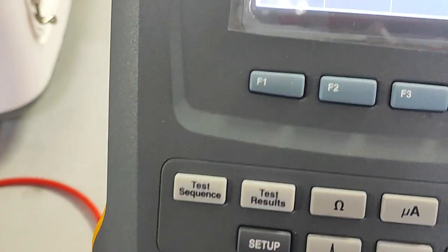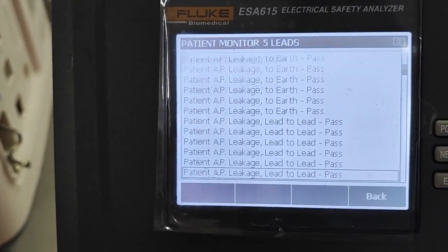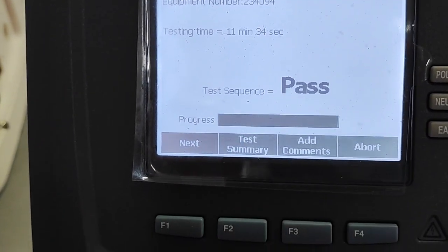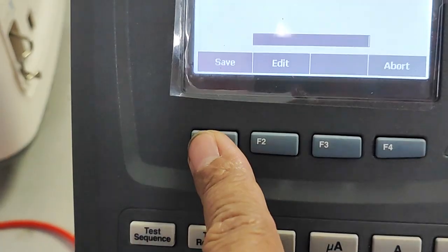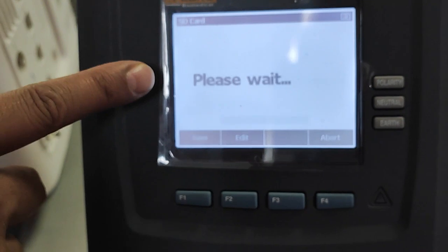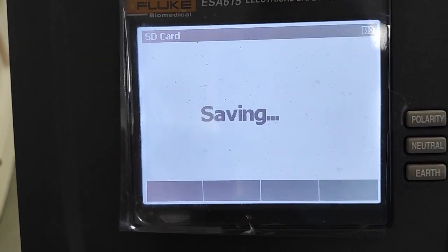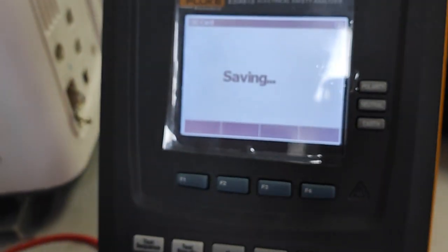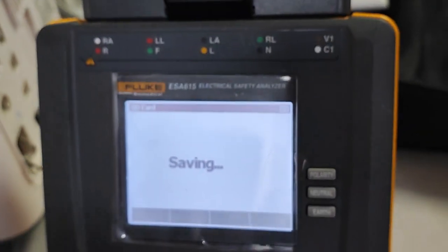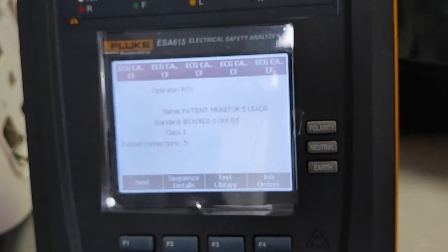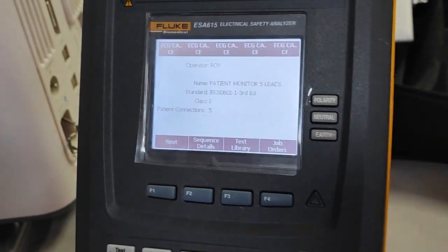You can check everything here. Once you go back, save the data. Press Back, then Next, then Save. Your tag number and date and time are saved there. You can also change the name of the file. If you want to retrieve that data later, you can retrieve it. That's it — very easy to use. Just put in all these details and that is the use of the Electrical Safety Analyzer.